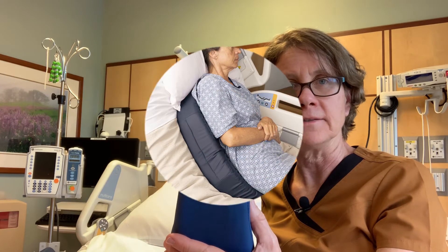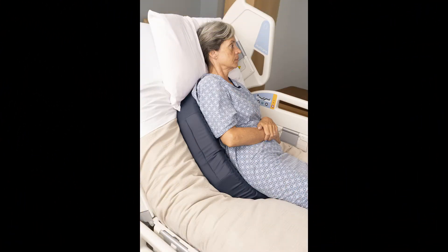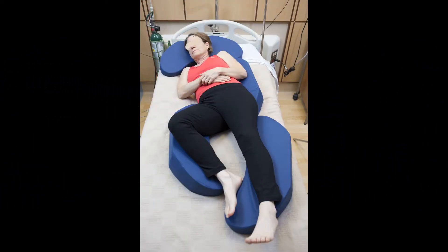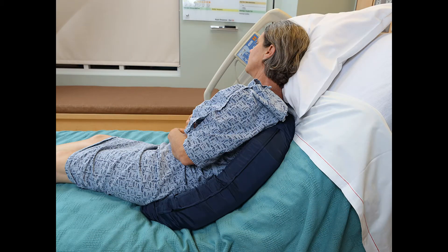So how does the backbone design do this better? The backbone is the only cushion designed with this patented crescent shape and dual angle gradual design. These two elements are critical because they work together to support the person in a cradle-like fit and comfort under the person's back with fully distributed support but no touching across the wounded areas.